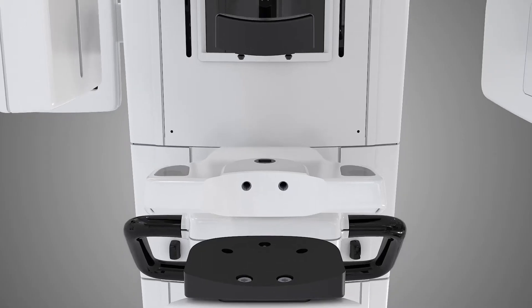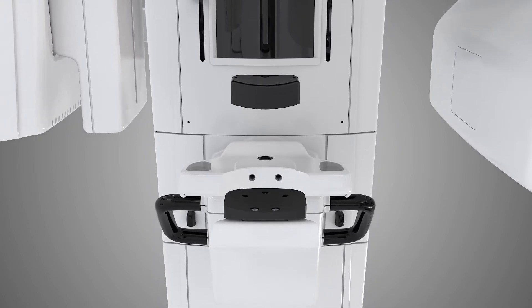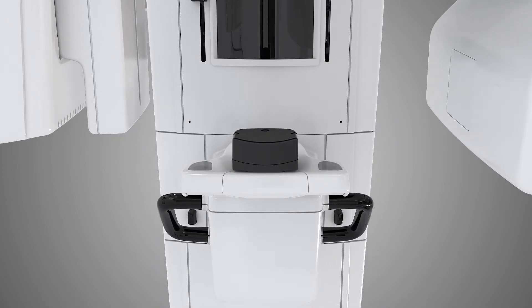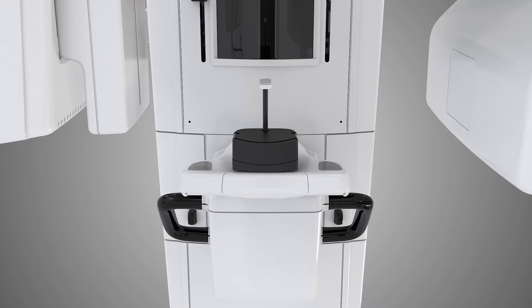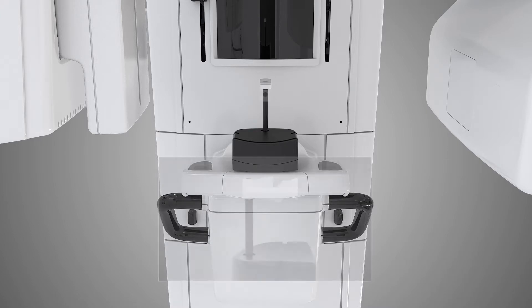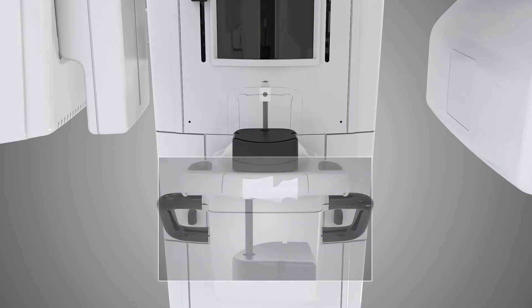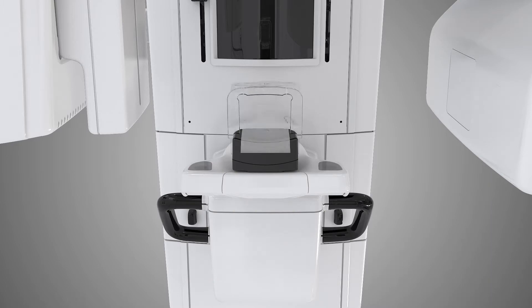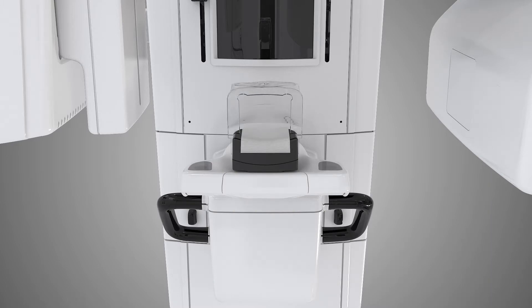Prepare the unit for use. Assemble the chin and sinus rest. Place the bite fork with bite block into the chin rest. If your patient is edentulous, use the edentulous bite positioner or the chin support. Place barriers on all items needed at this time.